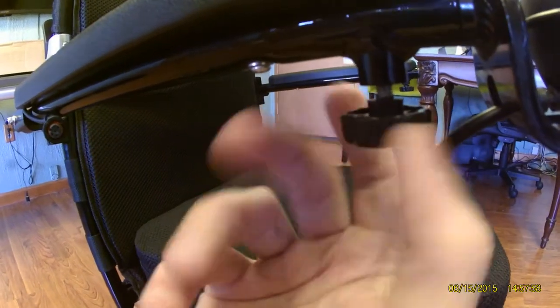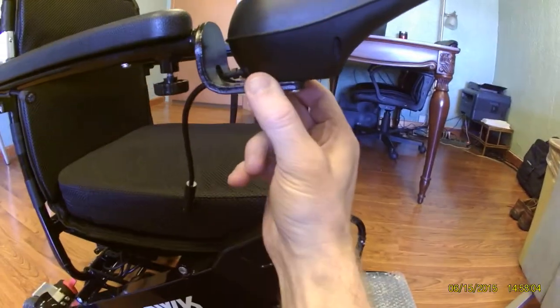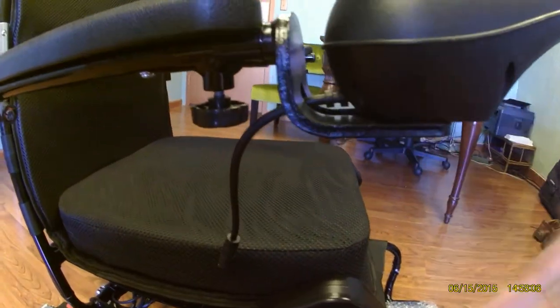You are going to line it up, making certain that there is enough tension to allow it to very easily slide in. Screw it in, and you can see that even though I am trying, that joystick is very secure.